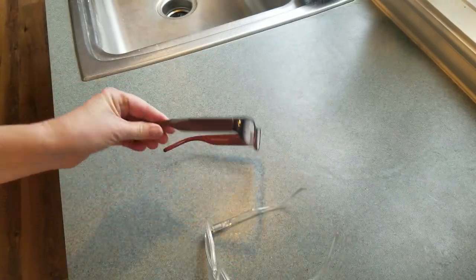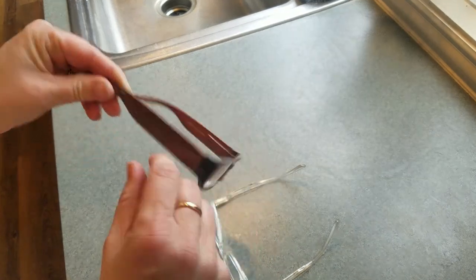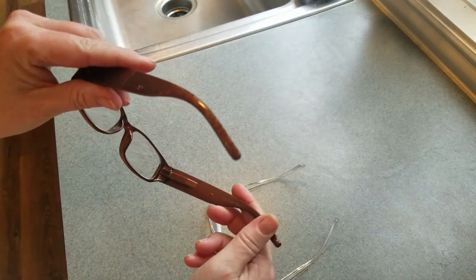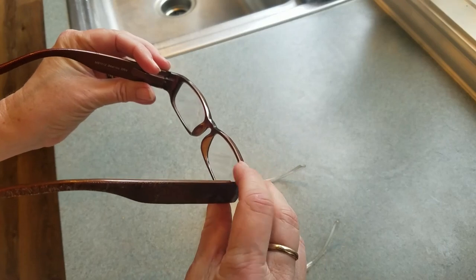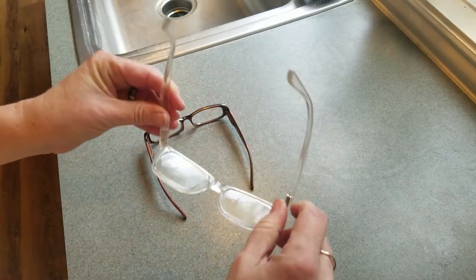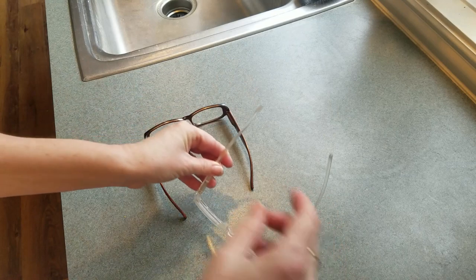These are just magnification glasses. This set is a 1.5, so it's 1.5 magnification, and this is 2.0 magnification.